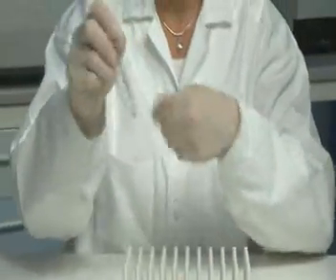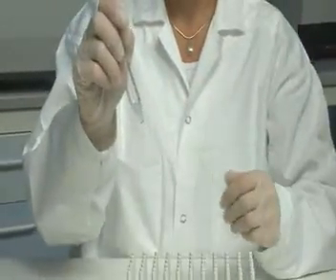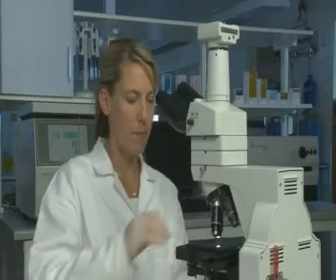Re-suspend the sperm pellet. The sample is now ready to use.